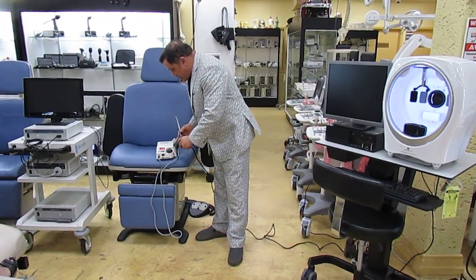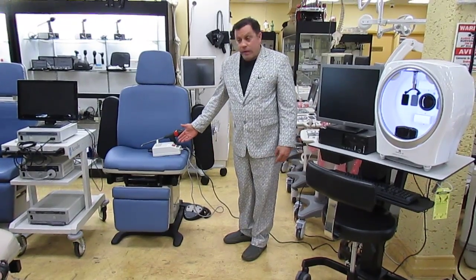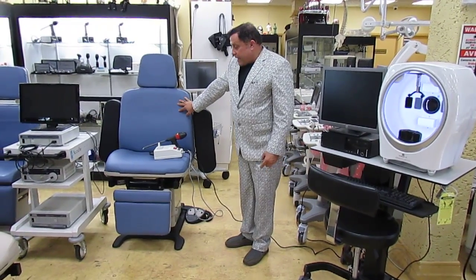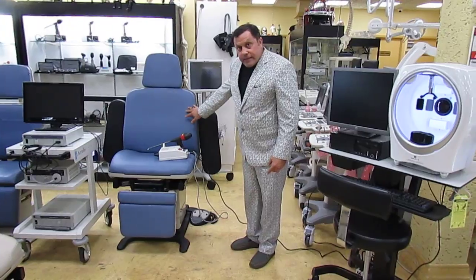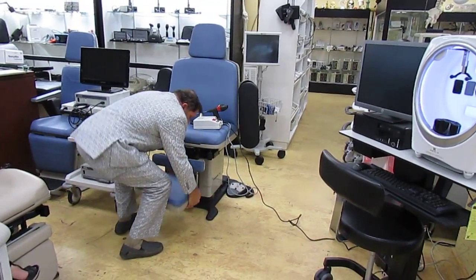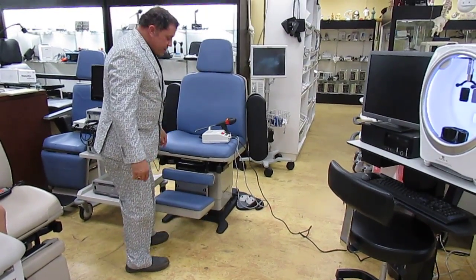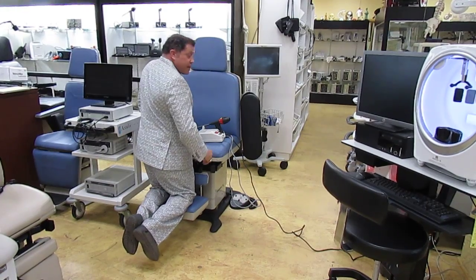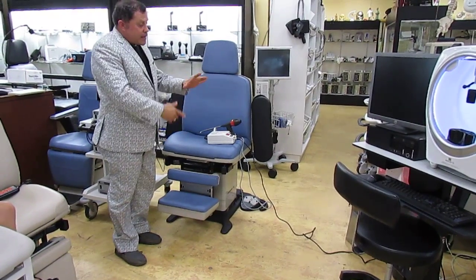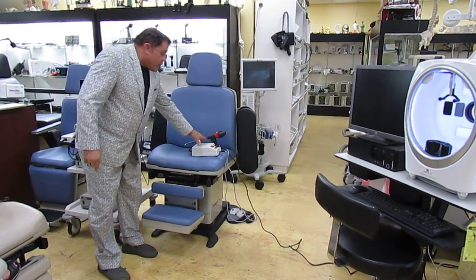That's the IRC you see here at the Doctor's Toy Store. Call us if you want to buy or sell one. Also here is a Midmark 75L power chair — this is the type of chair used for hemorrhoid removal. The leg section pops out so the patient can get into the knee-chest position, giving you a straight shot to perform the procedure.